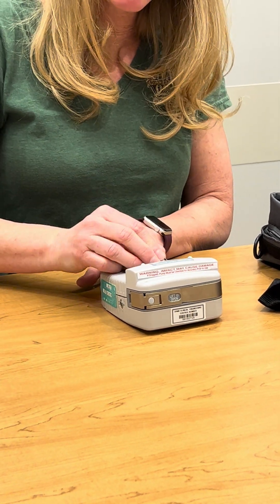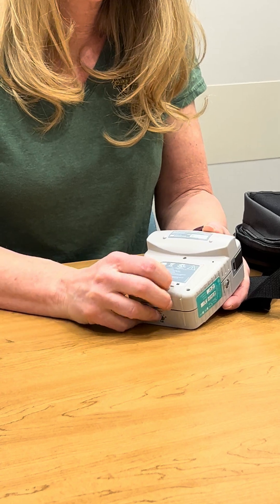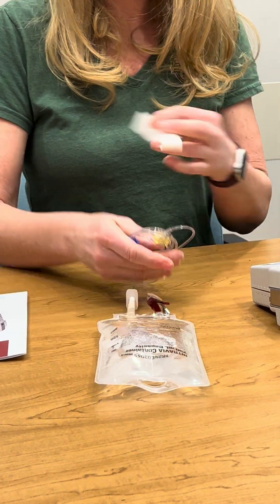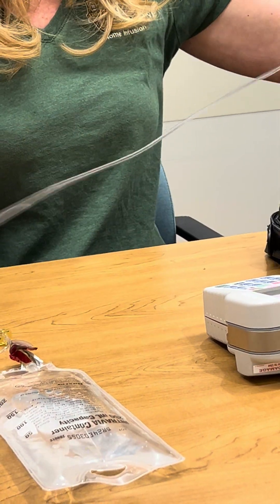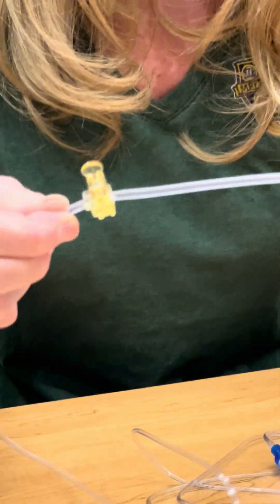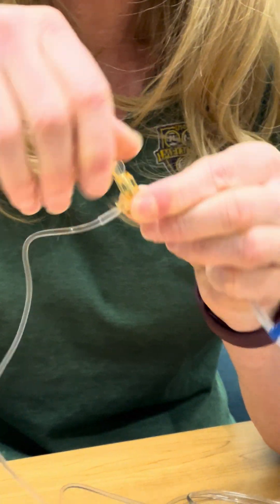I'm going to put my 2C batteries into the battery case like this — slide the door up and lock it. Next I'm going to get my milrinone and take off this paper tape. I'm going to open up this tubing. On the tubing there are two colored pieces that we're going to put into the pump. We need to twist this piece off for it to fit — it's a breakaway tab.